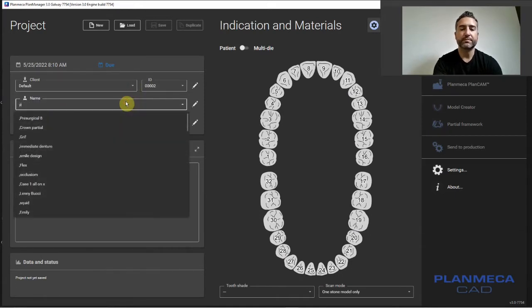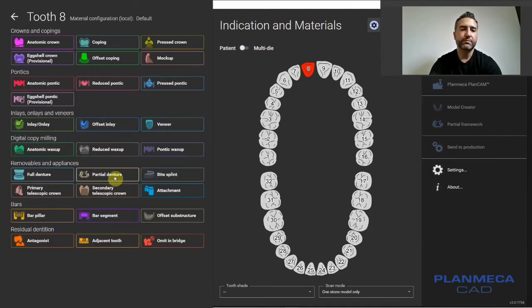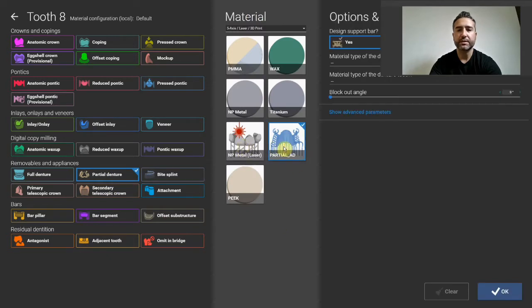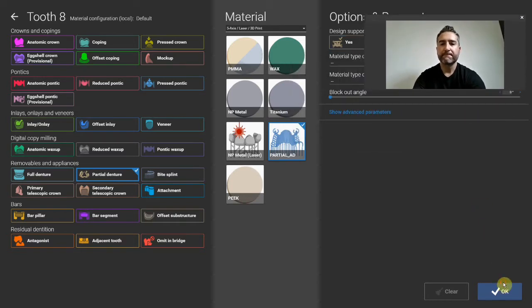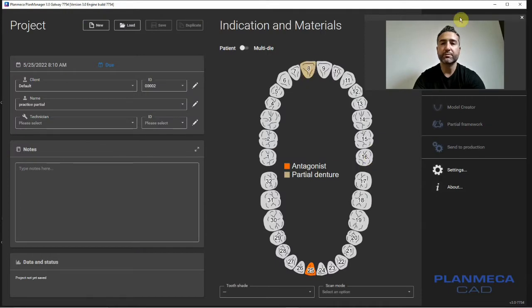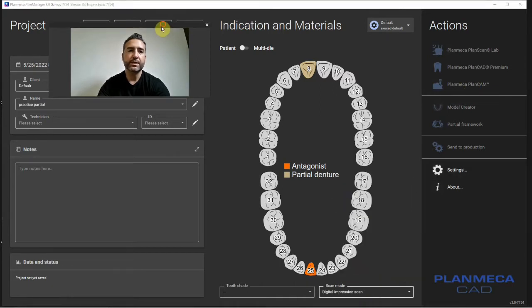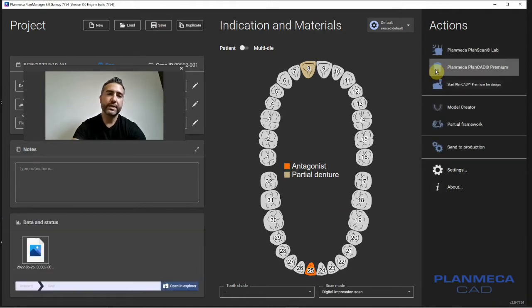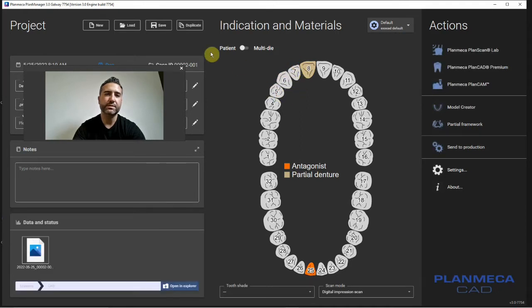Default client — let's just call this 'practice partial.' We'll do a really easy case, I think it's tooth number eight. We'll literally just call this 'partial denture.' Let's click 3D printing. That should be it. We're going to replace tooth number eight. We'll call this digital impression scans and save it. That's the setup in a nutshell. If you had multiple pontics, you could drag and do connectors, but for this particular instance it's just a single tooth. Let's go ahead and launch design.